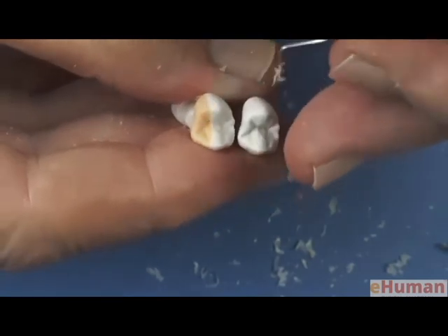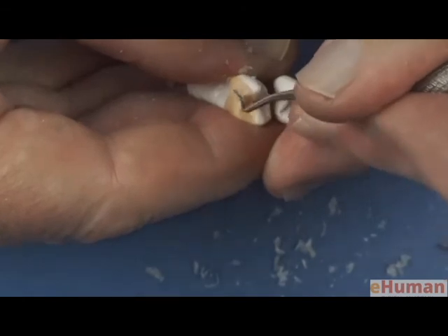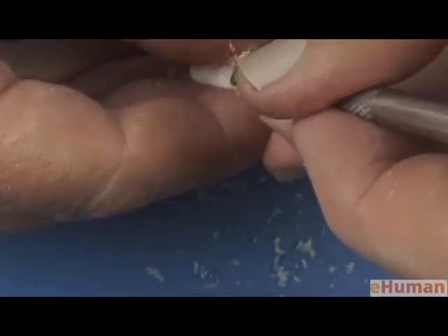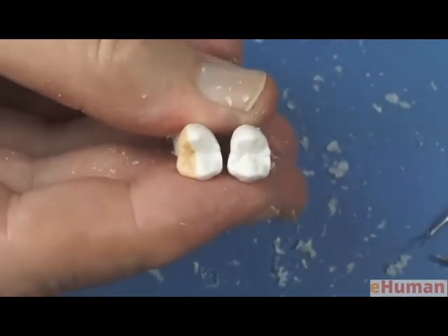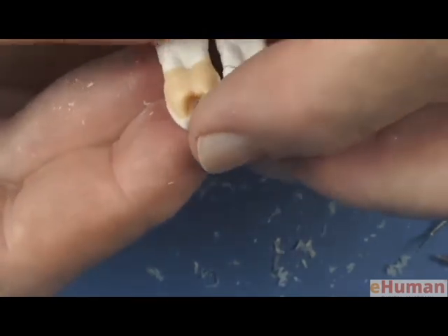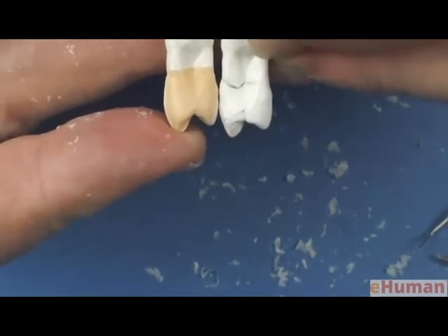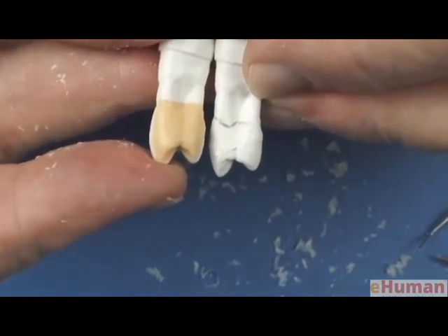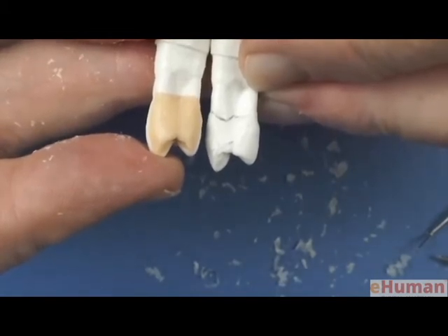Still needs a little bit more. Notice how I carve from different directions, and that gives you a smooth, uniform surface as opposed to one that gets ridges or ripples in it. So we're now pretty close, and now I want to take the mesial view because we want to look at this and make sure that we have a depression, that the mesial marginal developmental groove does in fact cross the marginal ridge. So it looks like we have now completed except for the final smoothing and polishing.